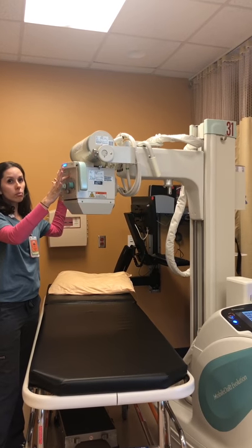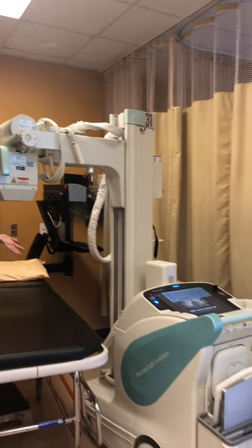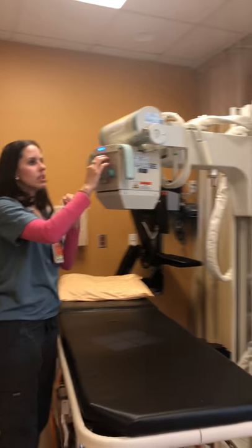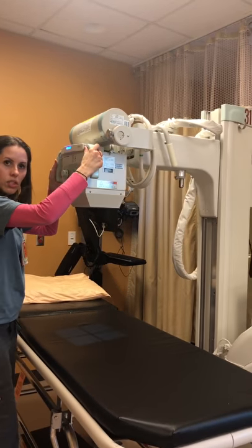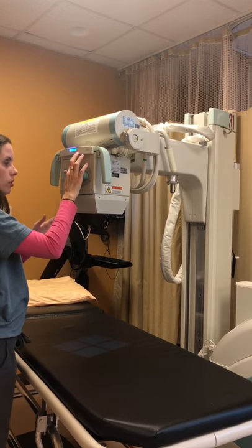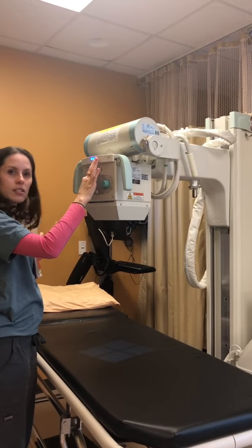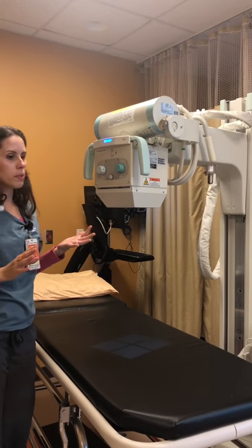You can also drive it backwards — I'm just holding, not even pushing hard, and it's doing it. So again, in those little incremental movements where you need just a little bit more but you don't want to or can't physically push the machine, you're able to do it right here — very simple, nice and smooth.